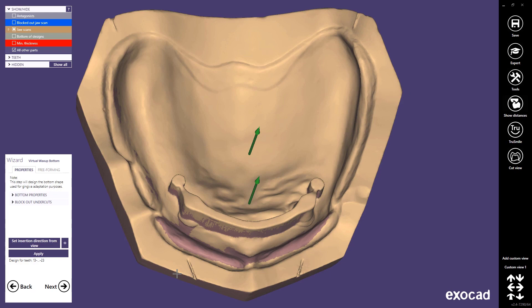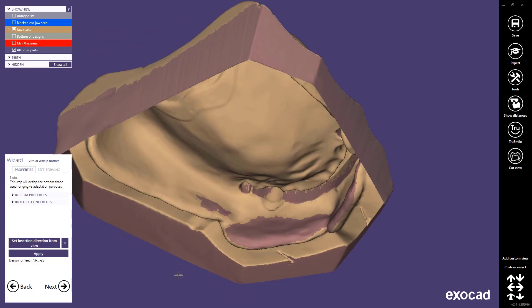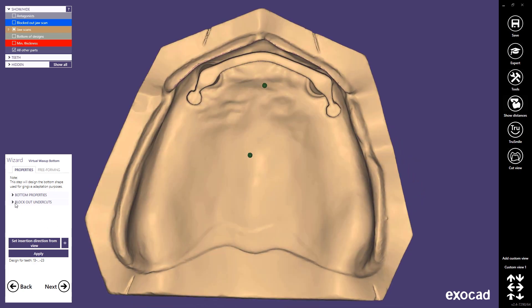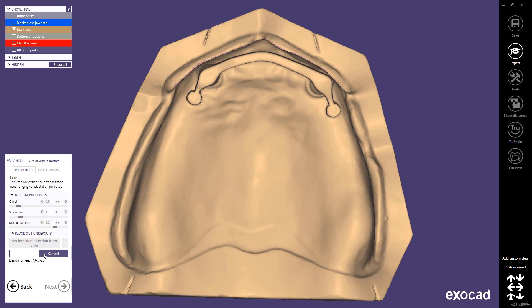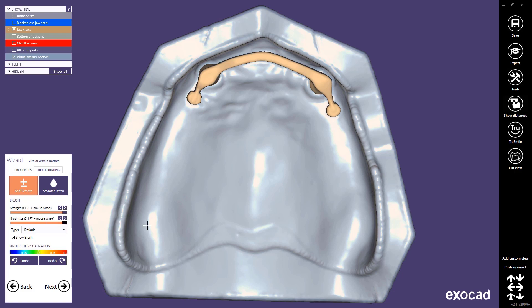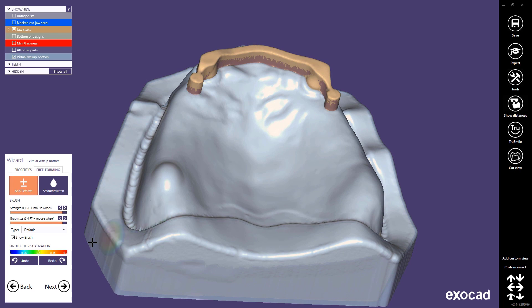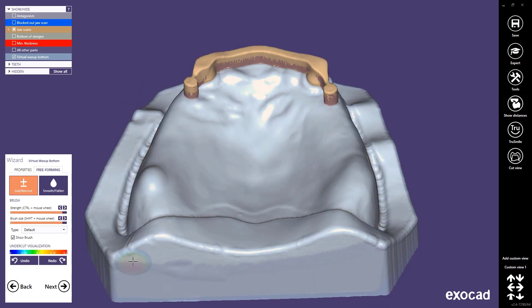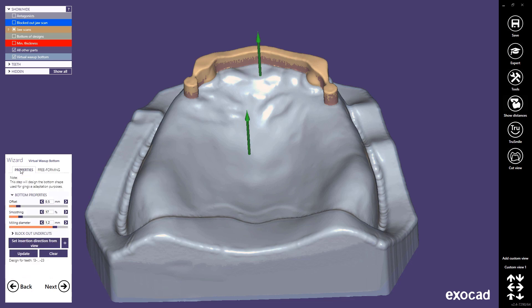Now the software asks us to block out the virtual wax-up. Please be aware that by default the insertion direction is the same as the insertion direction of the bar. We can change the properties such as the offset, the smoothing, and the milling diameter. Let's now change the offset to 0.5 to create space between the model and the offset substructure for the acrylic part. Thanks to the freedom of our software we still have the possibility to modify the block out — we can change the strength and the brush size and add or remove material. In this case there is no need to do so; please press undo and click next to go to the next design step.